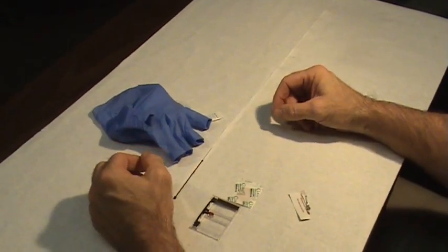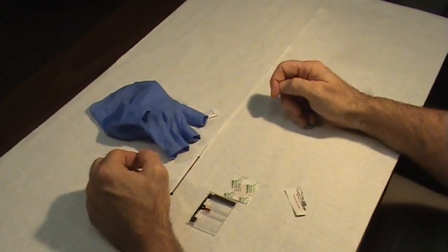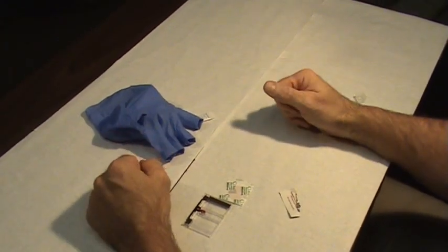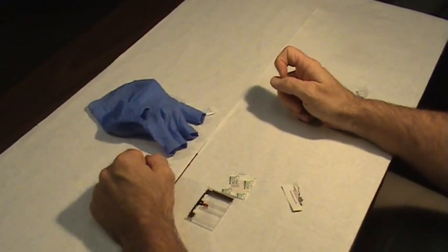However if you have one in your office, it's always a good idea to go ahead and use them anyway. And that's how you perform the blood cassette test.